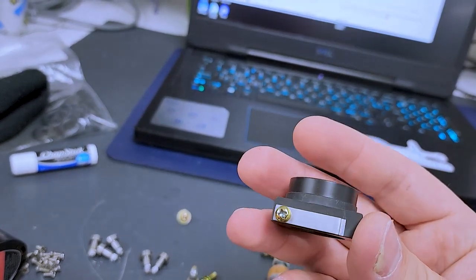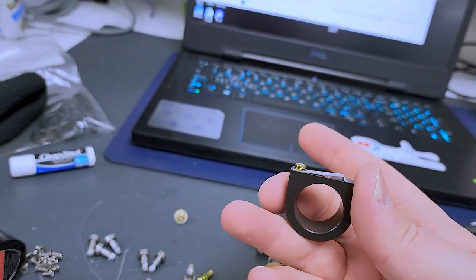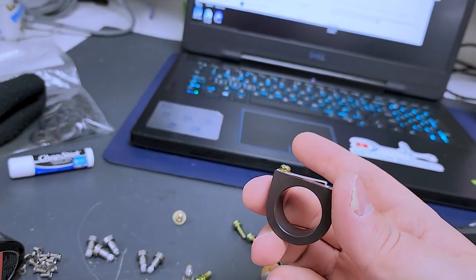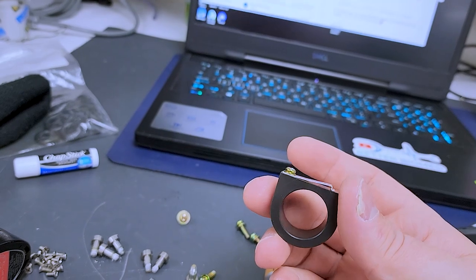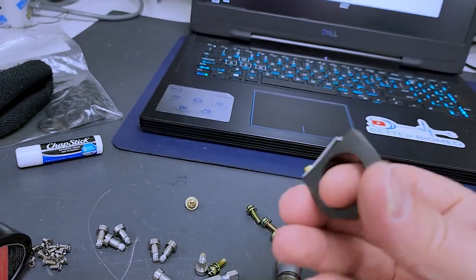Reassembled. Torqued it down. And you got to make sure, because it's only indexed by a single hole, that both of them are covering the hole correctly. Because if it's even partially not covering the hole, it's not going to build pressure.